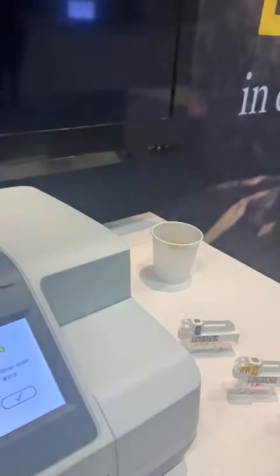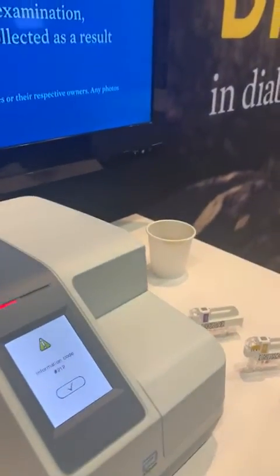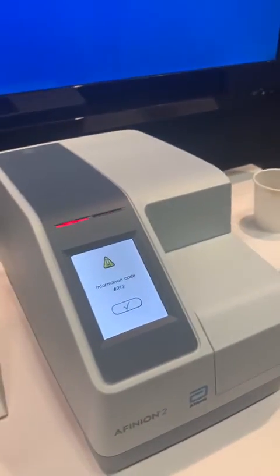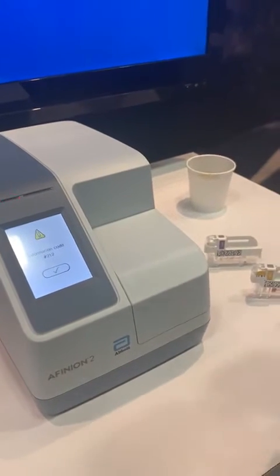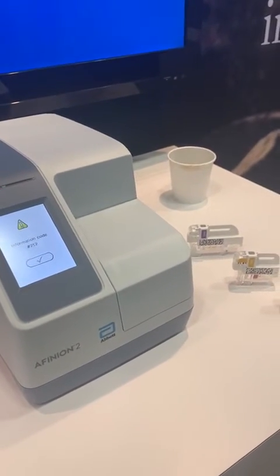So how long do you think it takes until it will be really ready for direct use? I don't know exactly how long the registration process takes, but we expect it should be somewhere later this year. Thank you. You're welcome.